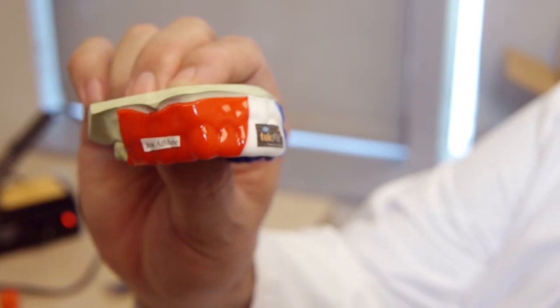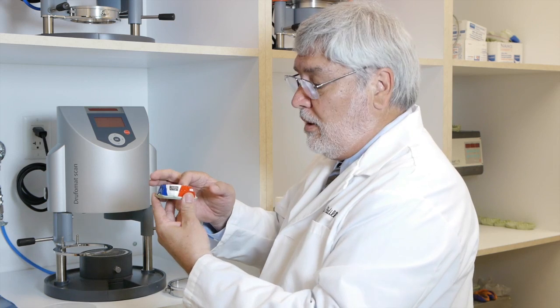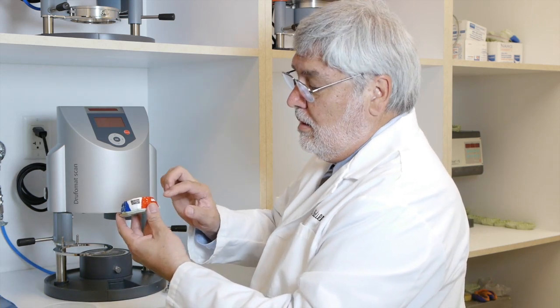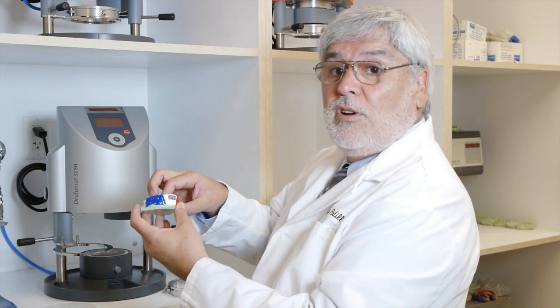Now we're ready for our second layer. The logo is placed and glued, the name is placed. Don't do any trimming other than just cutting with a hot knife. You don't want to contaminate the first layer. Make sure your hands are free of any powder from gloves, any oils, any lotions that may prevent the second layer from laminating. Now that our first layer has cooled properly, we've trimmed it to the proper dimensions, and we've placed the logos on and the name, we're ready to start our second layer.